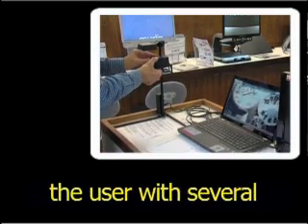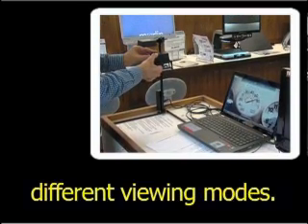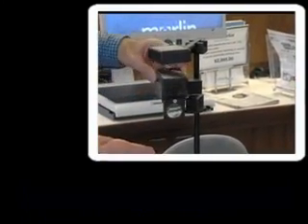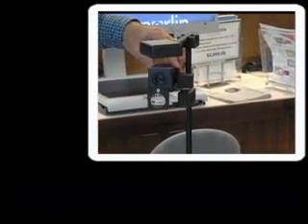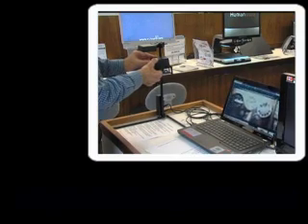These systems provide the user with several different viewing modes. The camera is within a small box on a narrow pole that can be attached to the edge of a desk.